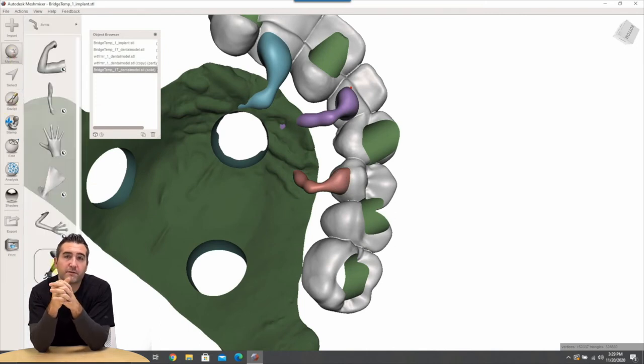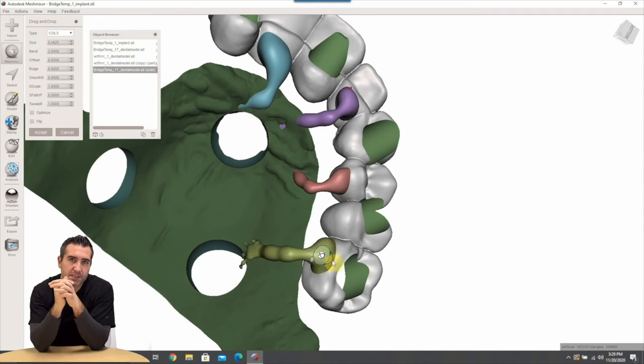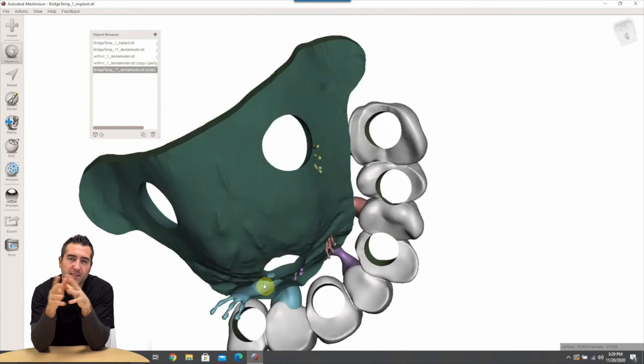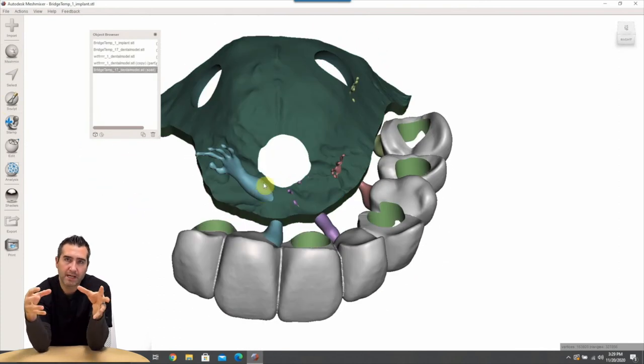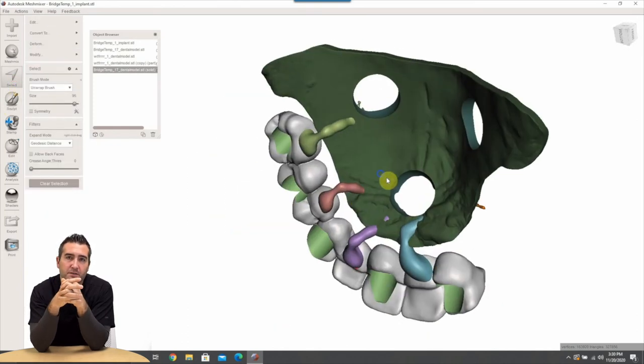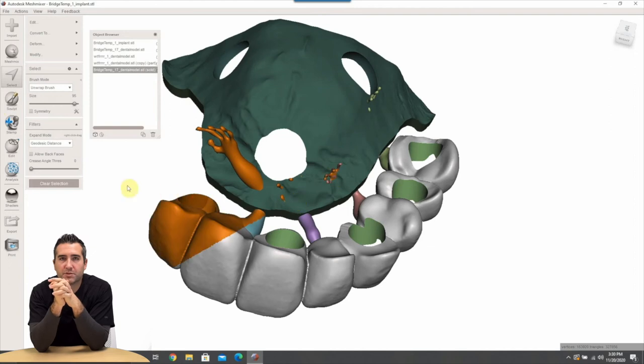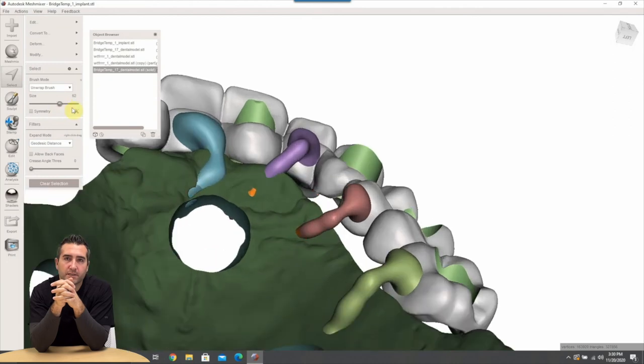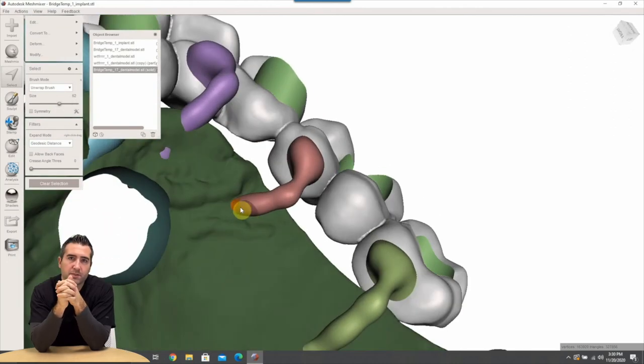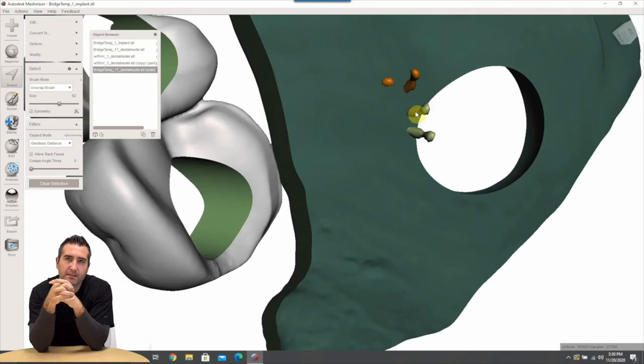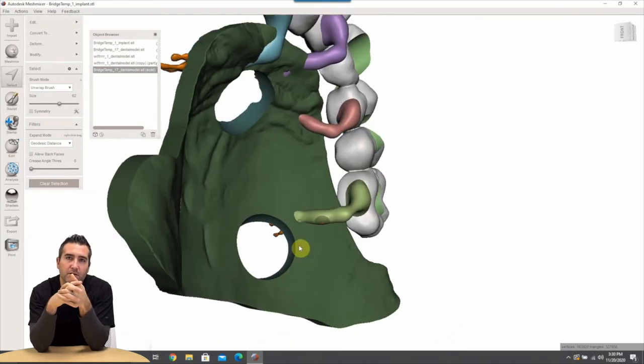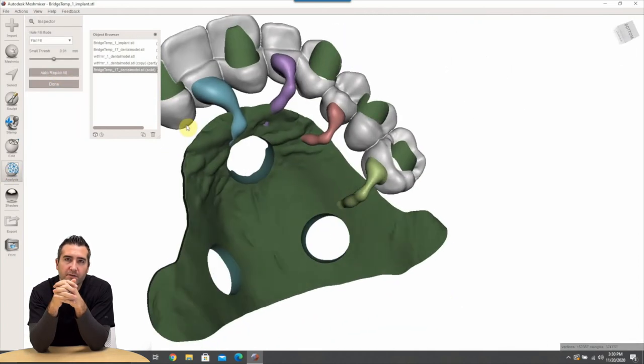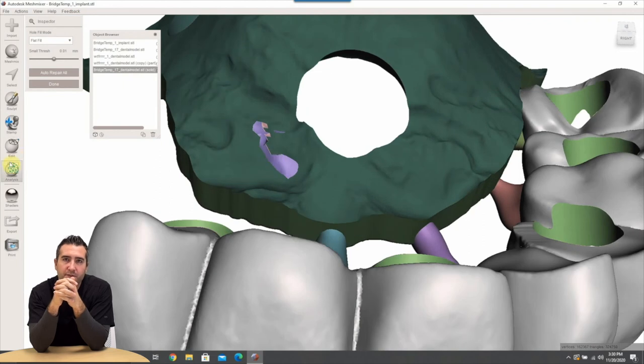And so these little arms are just default arms in Meshmixer and you basically just drag them onto the prosthesis and then rotate them so that they're grabbing on the palate. There's a hundred ways to do this. If you want to be a little more professional about it you could use more normal type shape things that are little arms but it doesn't matter, this is fast and easy. We're going to go ahead and delete any part of those arms that are sticking out through the palate by selecting that and then hitting X to delete and then auto repair all to close those holes from that so we can make sure that we don't have any open areas.